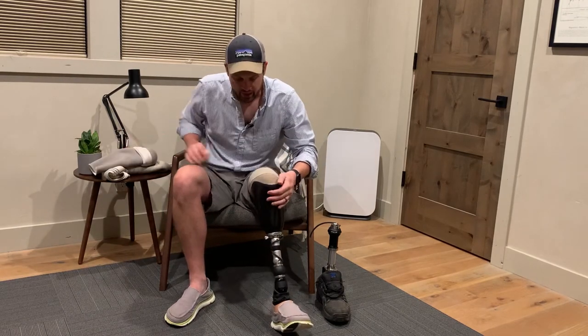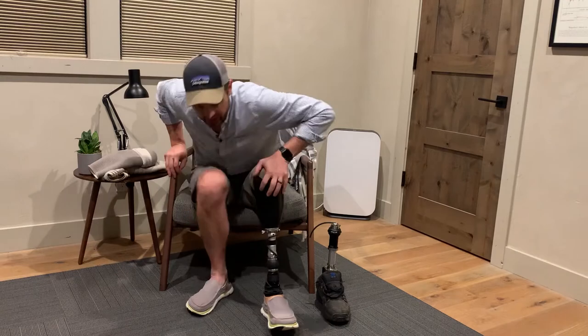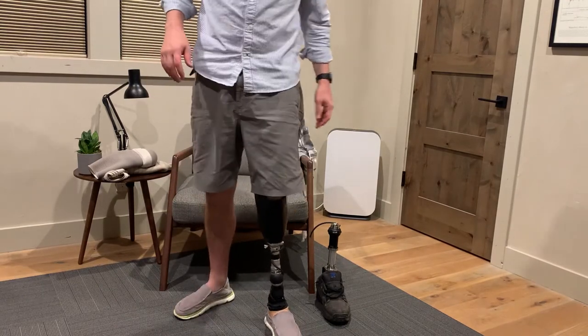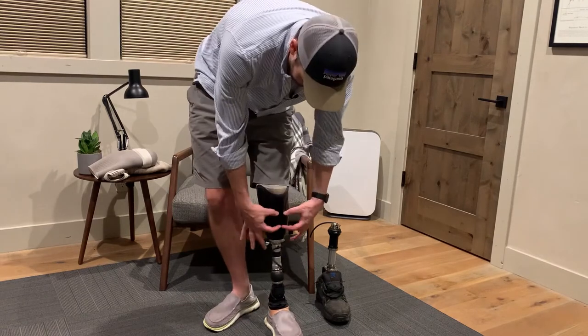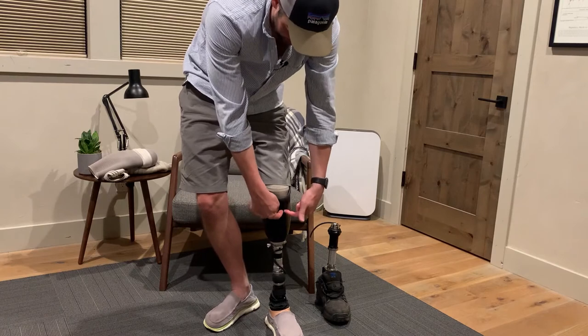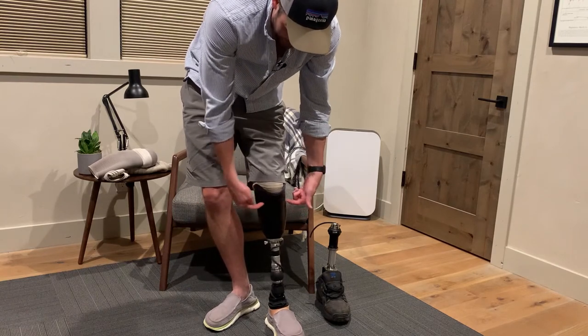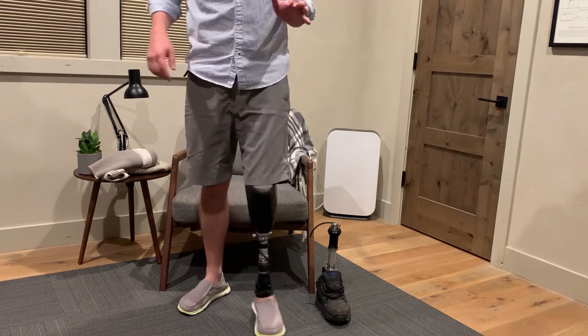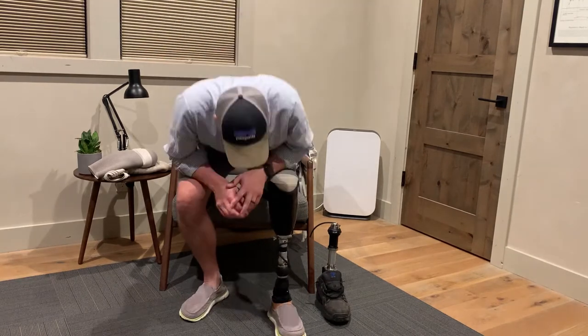But there's no pin, and because my limb is short, depending on how I'm sitting, standing, moving, or going upstairs, that seal breaks. There's just not a lot of space down here — even though it kind of looks like there is — because the seal starts right about where the kneecap space is, and the seal breaks all the time for me.